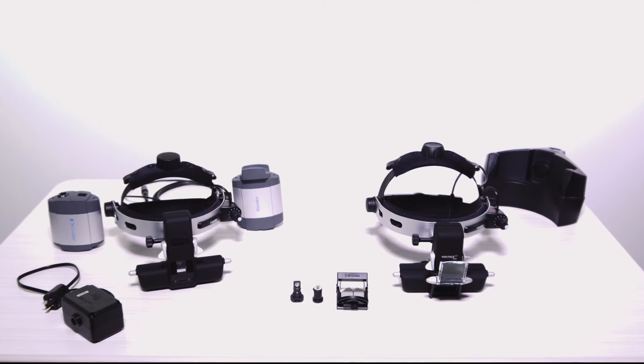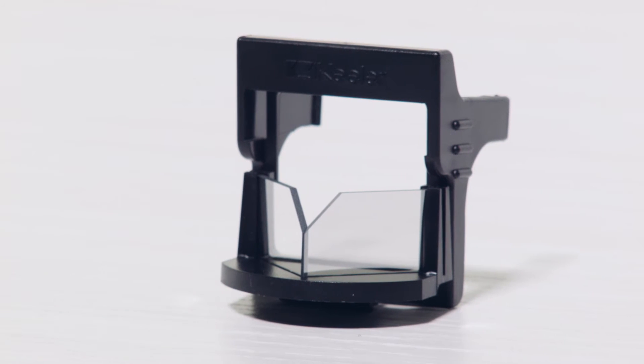The Vantage Plus has various options and accessories, including the teaching mirror for ophthalmology and optometry students.